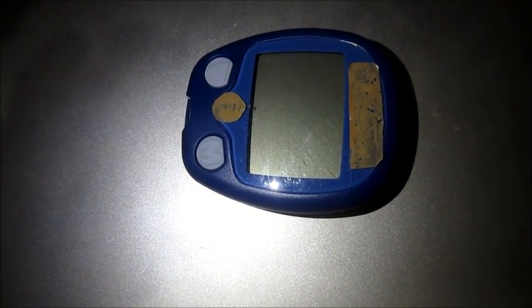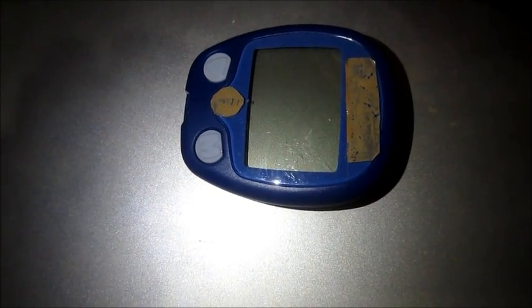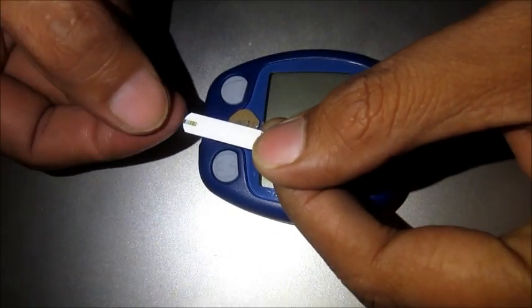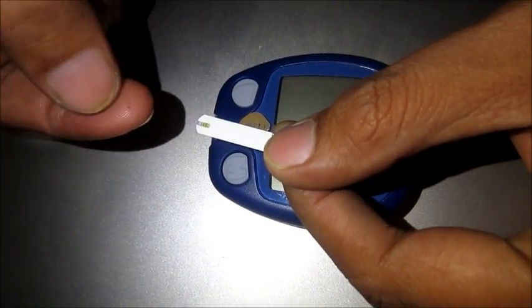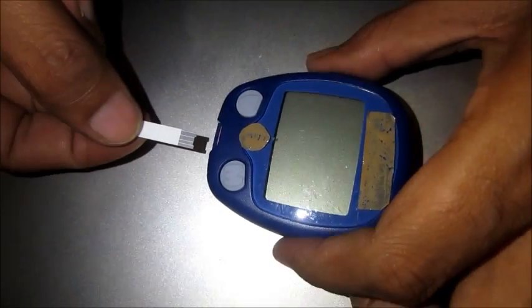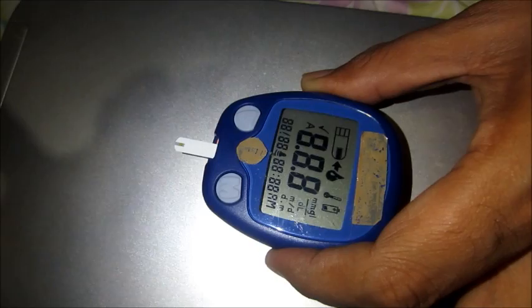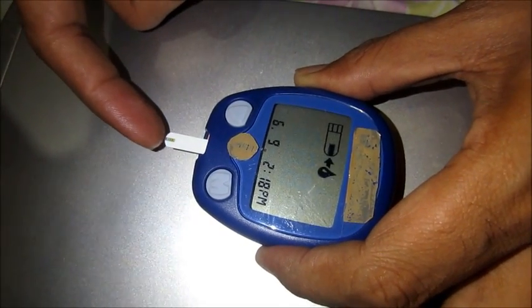Hi friends, this is a glucometer and this is a glucometer strip. We put a blood drop here and it goes inside by capillary action when the strip is inserted.